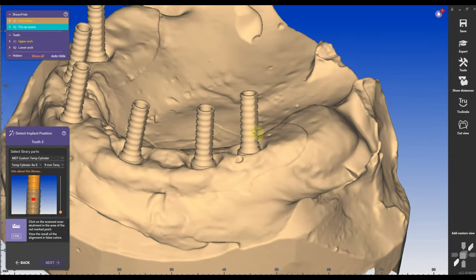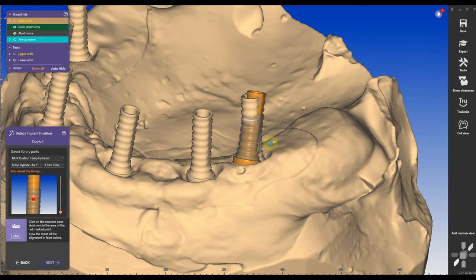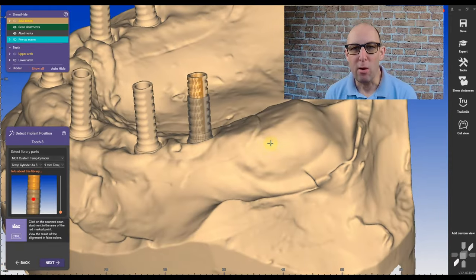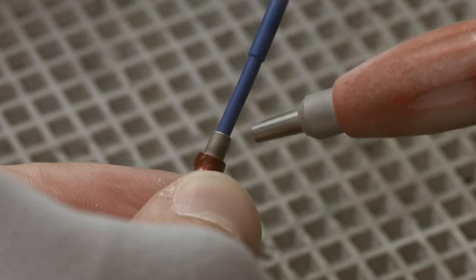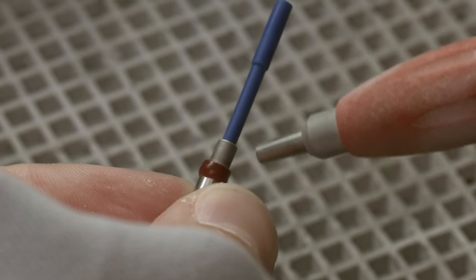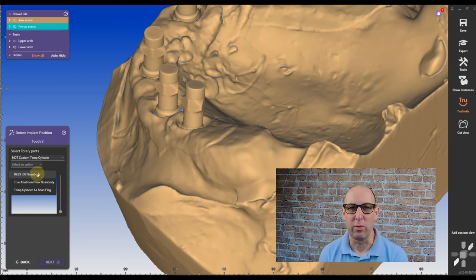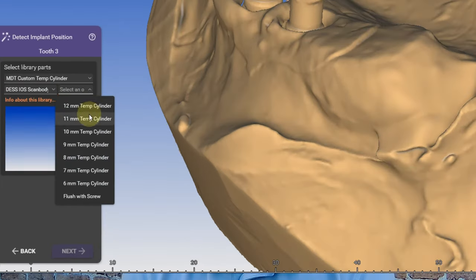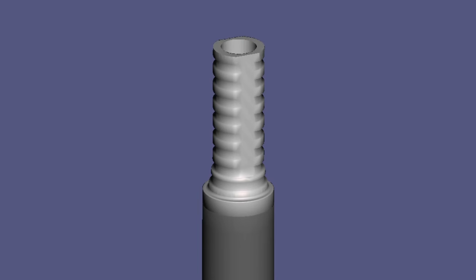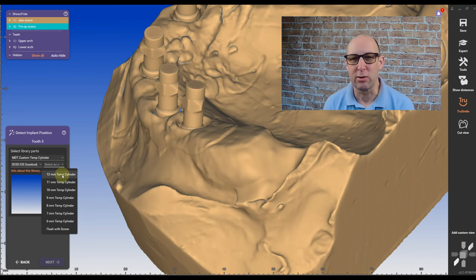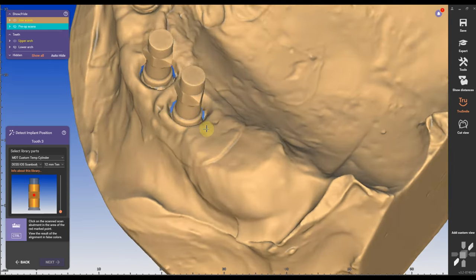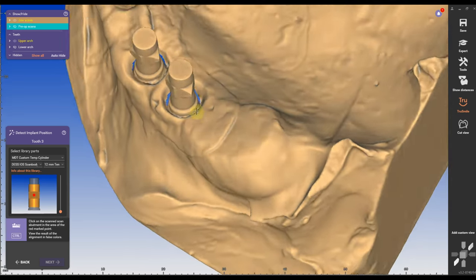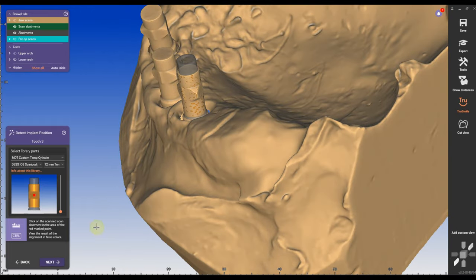Choose from different heights and alignment works very easily. A little trick: what I usually do, because the surface is very shiny of these tie bases, I'm sandblasting them to get rid of the shiny surface. You can select from different heights and I cut them down at the lower end of the tie bases, so you give it a very nice insertion into the material. Double-check if the orientation of the scan body is correct and align them.